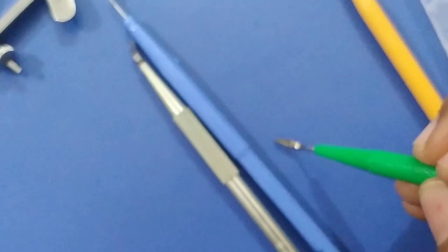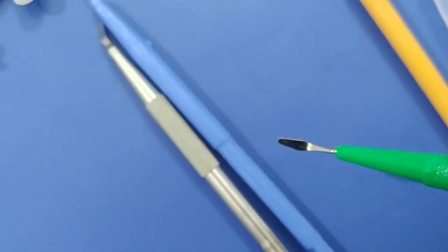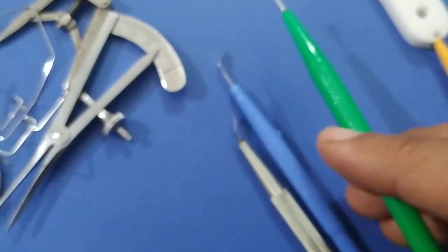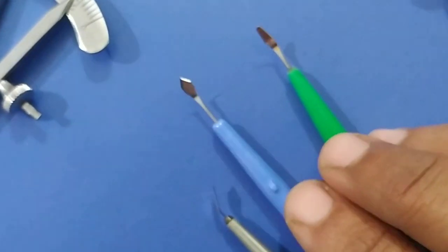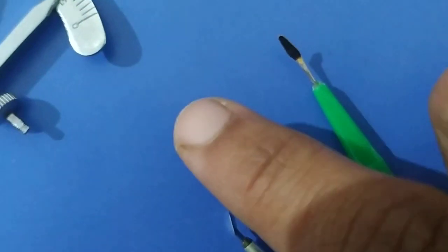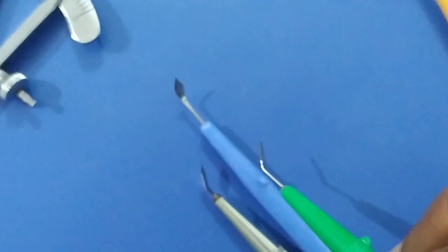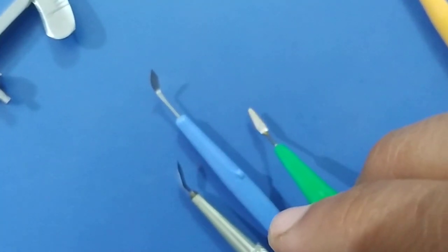This is a crescent knife. The crescent knife is crescent-shaped — it has sharp edges but the tip is curved. To differentiate it from the keratome: the keratome tip is sharp and the crescent tip is blunt, though both have sharp edges. The crescent knife is used to make the sclero-corneal tunnel during small incision cataract surgery.